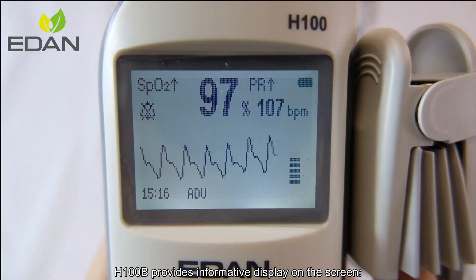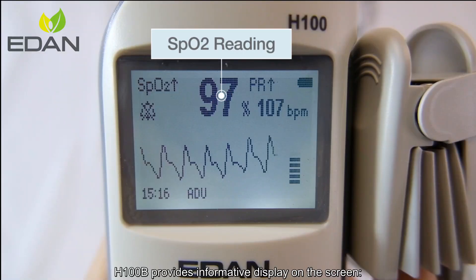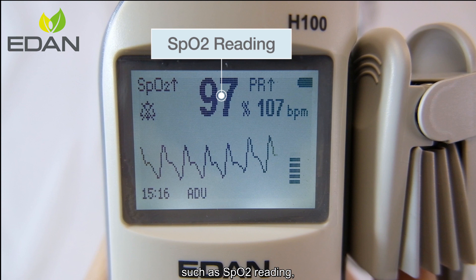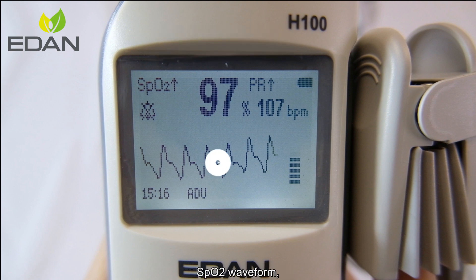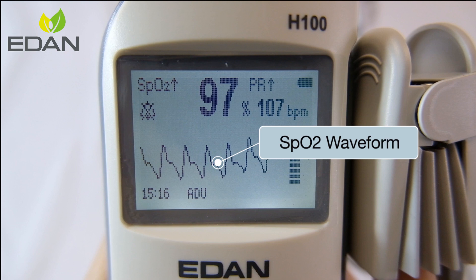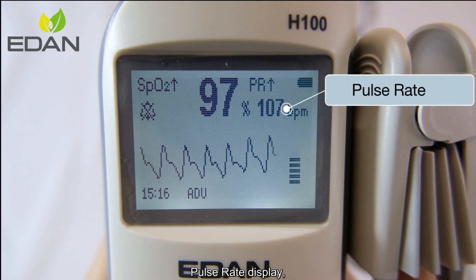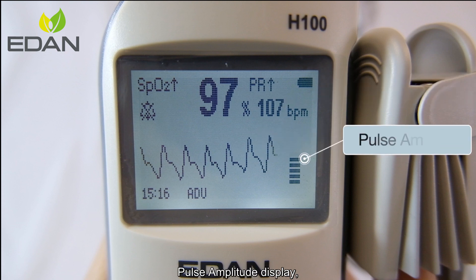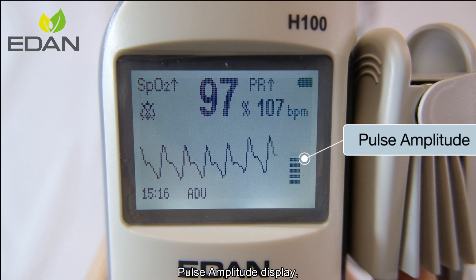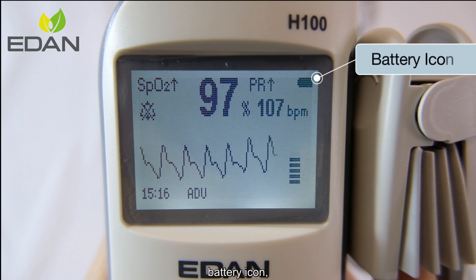The H100B provides an informative display on the screen, such as SPO2 reading, SPO2 waveform, pulse rate display, and pulse amplitude display with a battery icon.